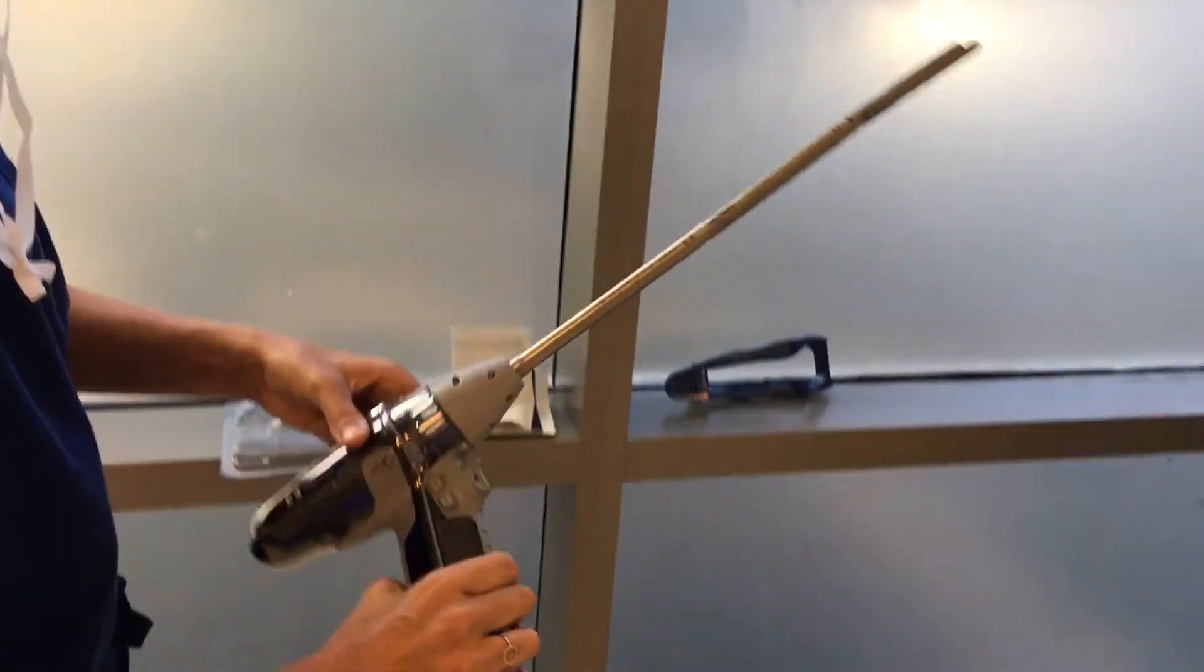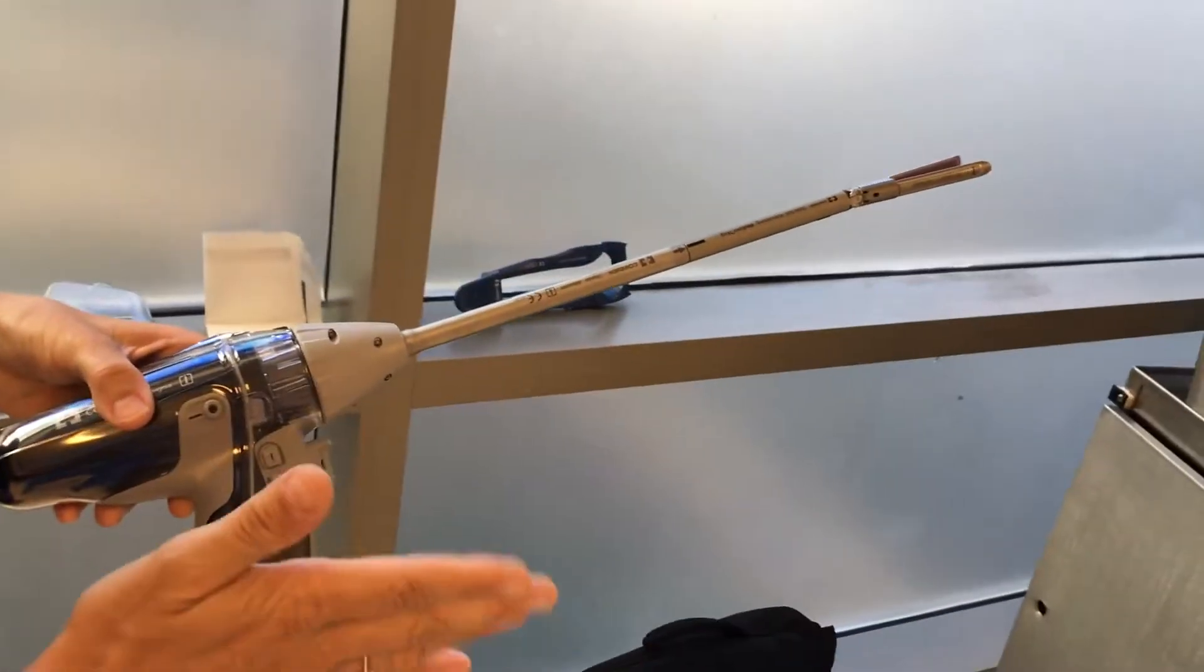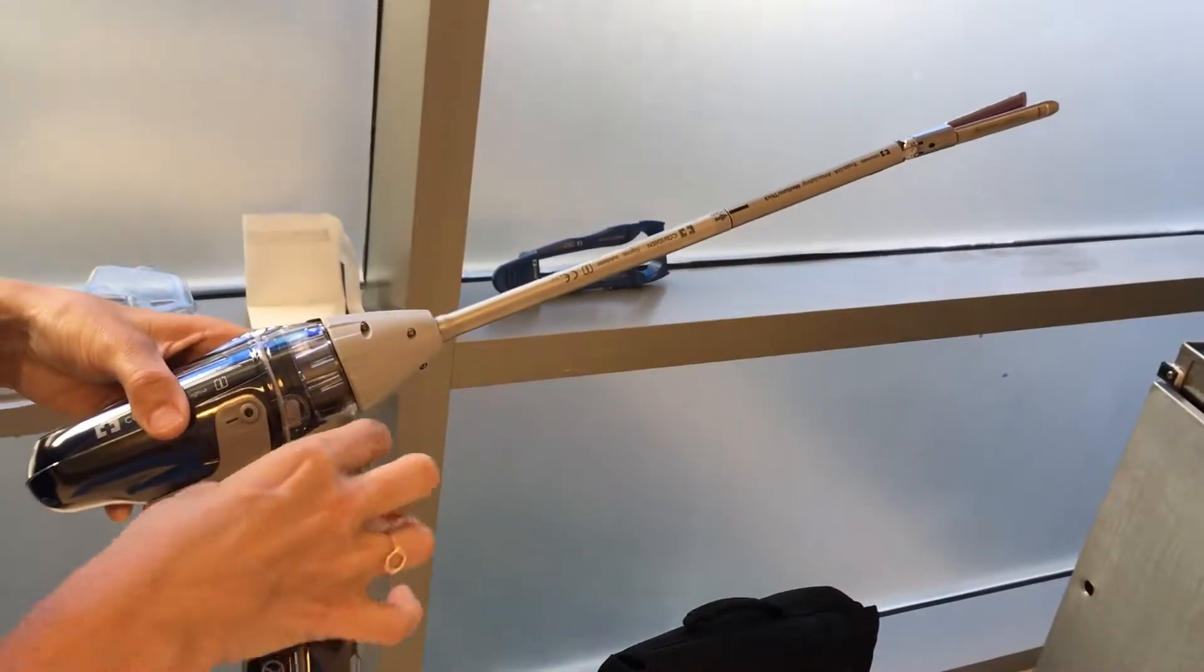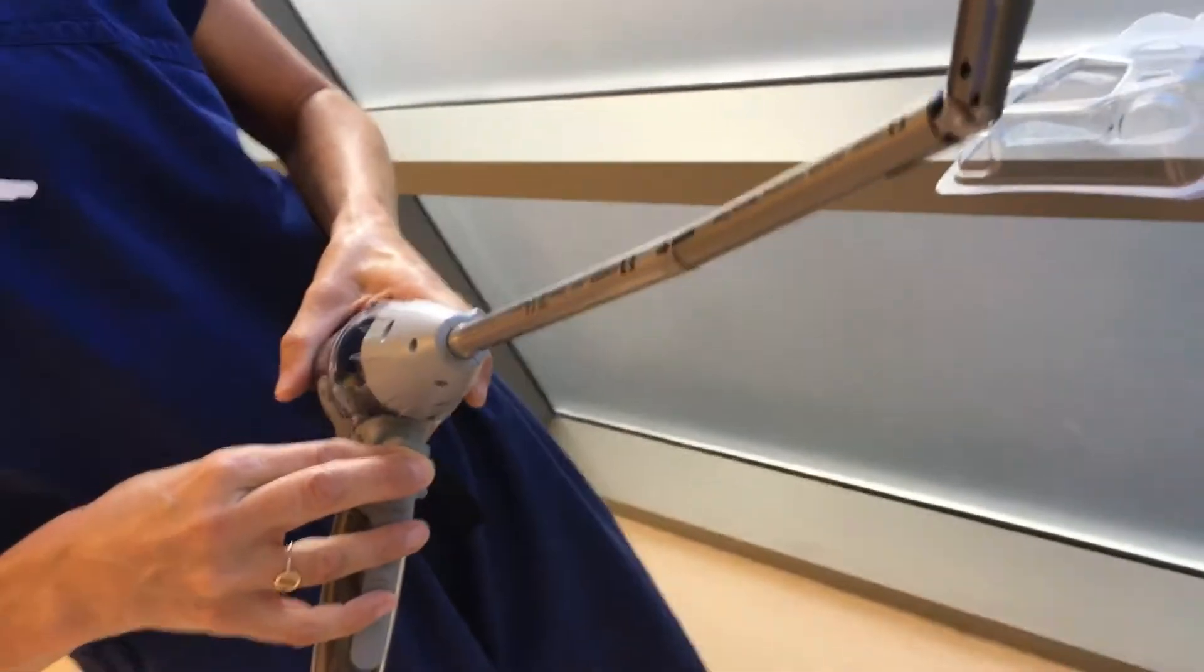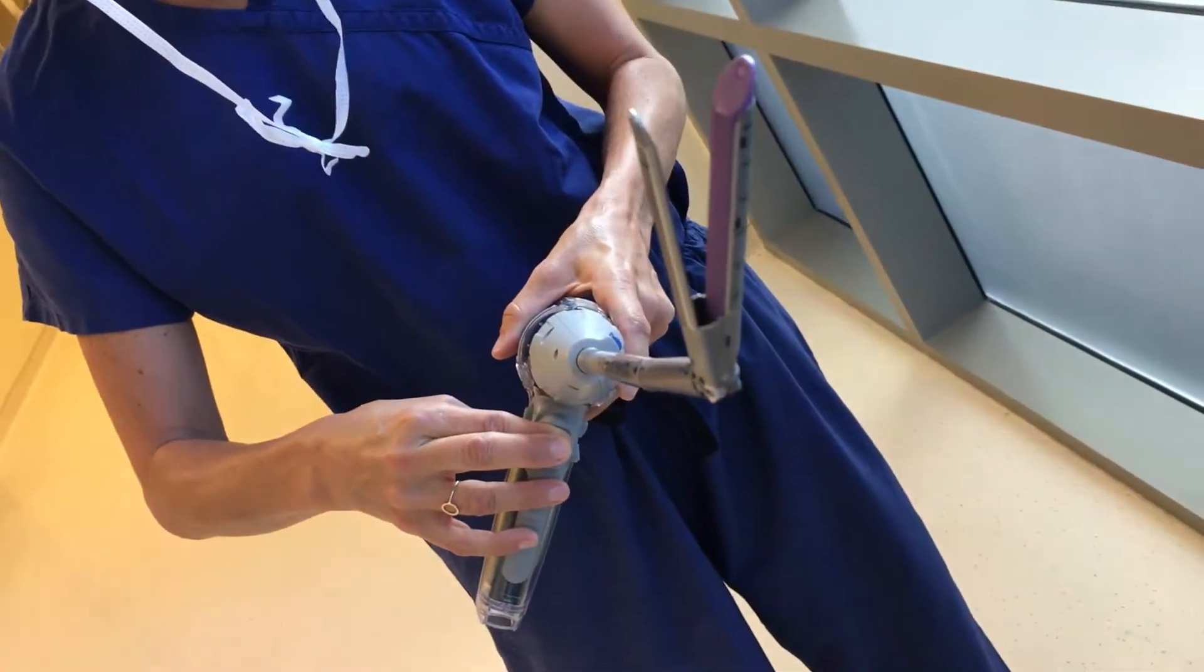Now most of the time the reason surgeons are using this is they want infinite points of articulation. In order to articulate, you're going to pull or push that toggle right or left. If you pull it, you'll notice that the reload fully articulates to 45 degrees.